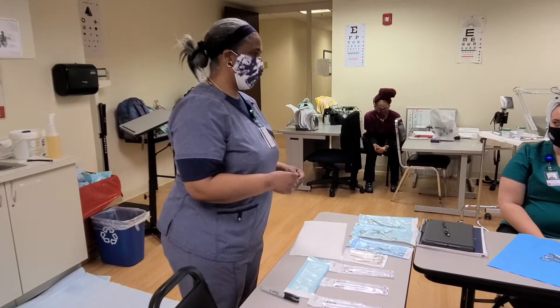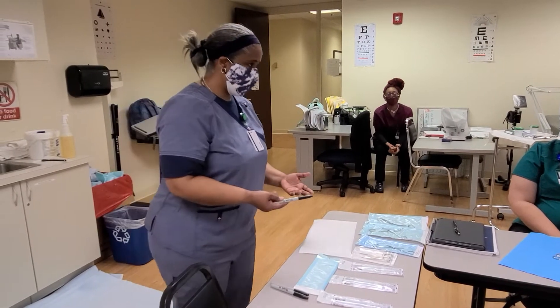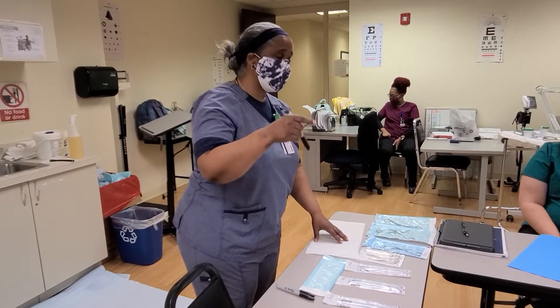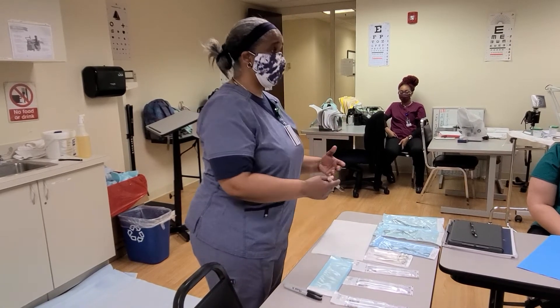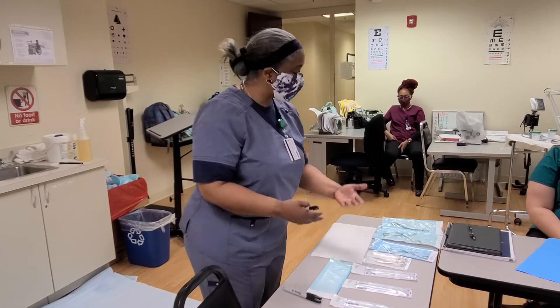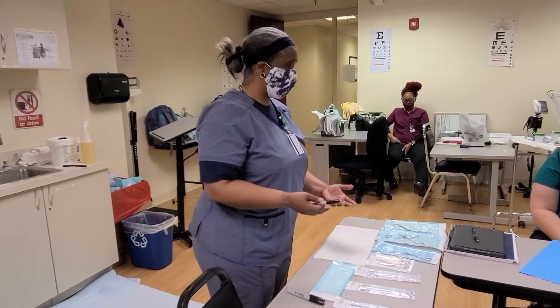We actually do one day short, so I would put November 19th, 2021. Then you also want to note what's in the pack. First, this lets us know who prepared these instruments — so if we open them and they're contaminated, we know who to go to. Second, it also helps us to understand when this is going to expire.